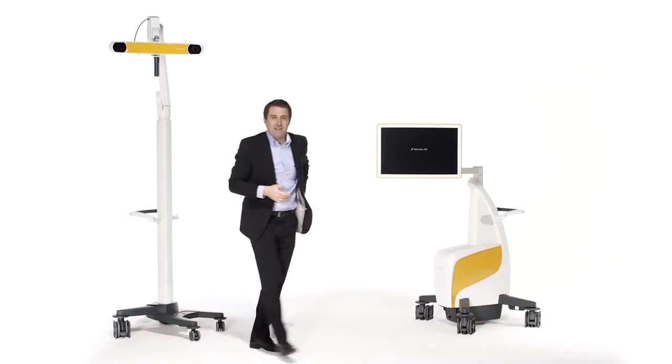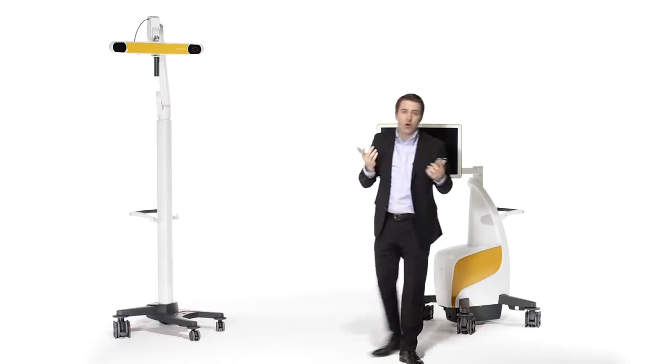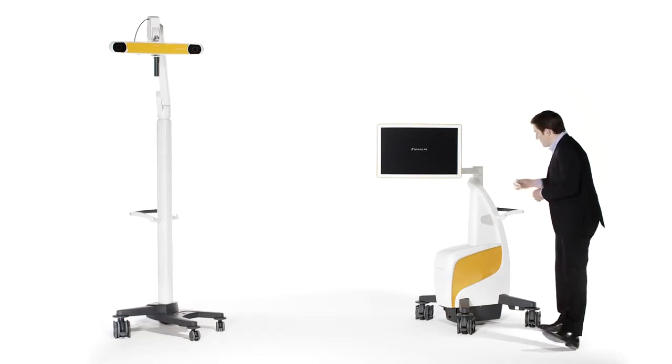Curve has a built-in high fidelity music dock which allows the OR team to navigate to their own soundtrack.